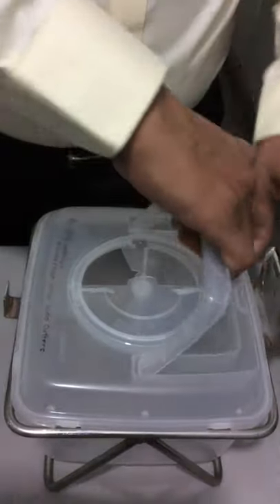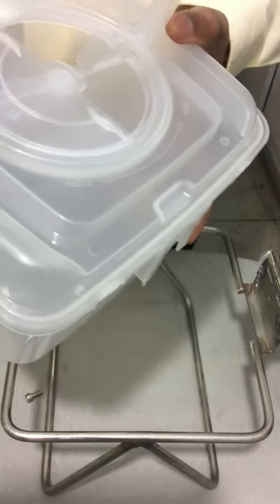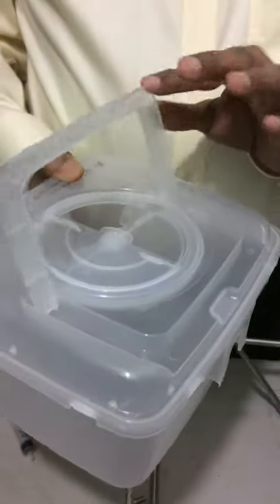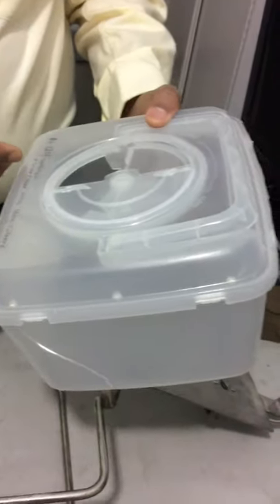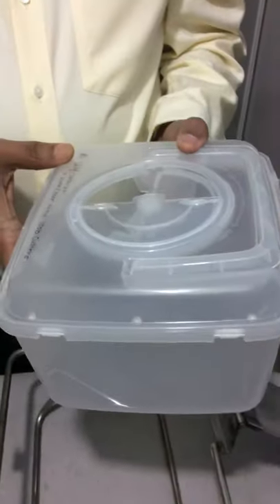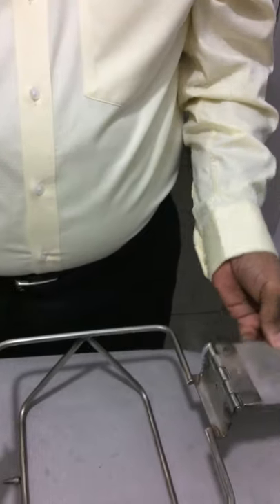Then the only option is to take out the box, autoclave it, and send it for further recycling as per the rules. Regarding cost, PJI is procuring 20,000 such boxes per year at Rs. 120 per container, and they are giving 1,000 cutters free of cost along with it.